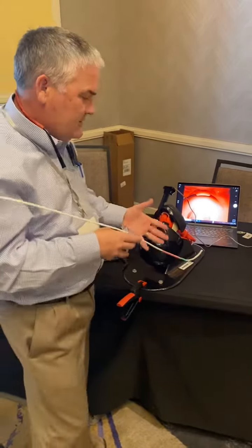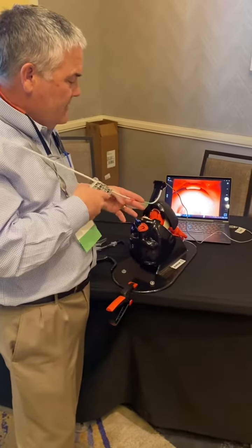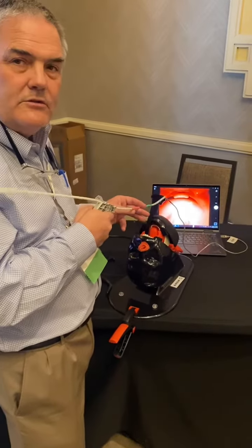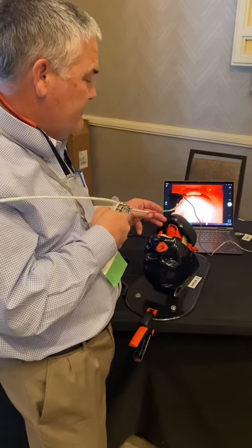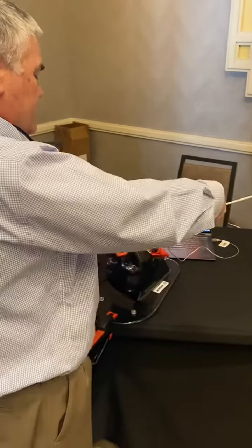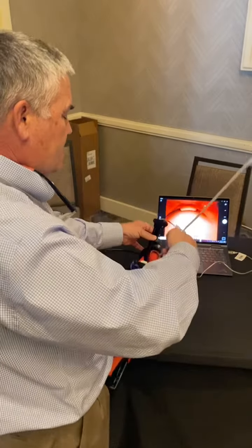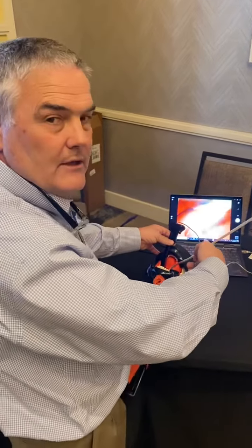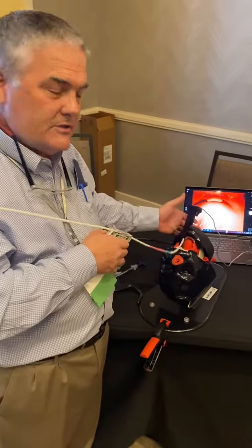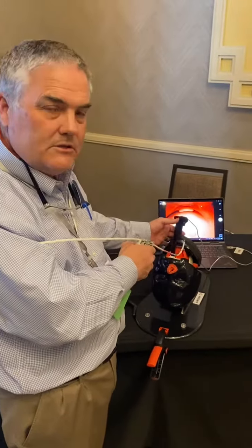The second is to do with access. The device wants to be parallel to the blade and the motion perpendicular, so everything's happening in the midline. I'll see people come in and try to do this, or they'll come in from the side and they're not midline. So you want to have people step back and take a bit of an archer stance so that everything works in this direction.